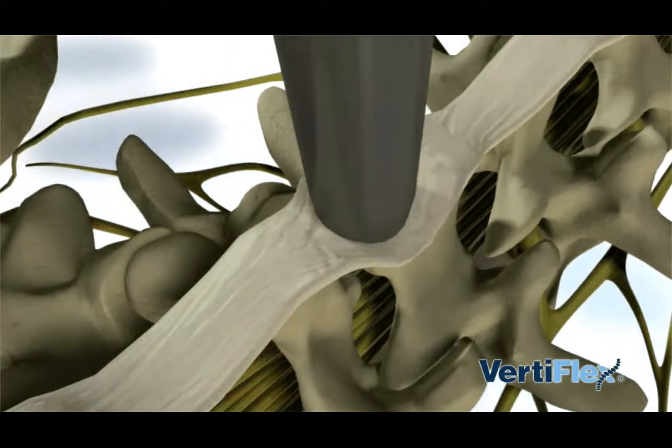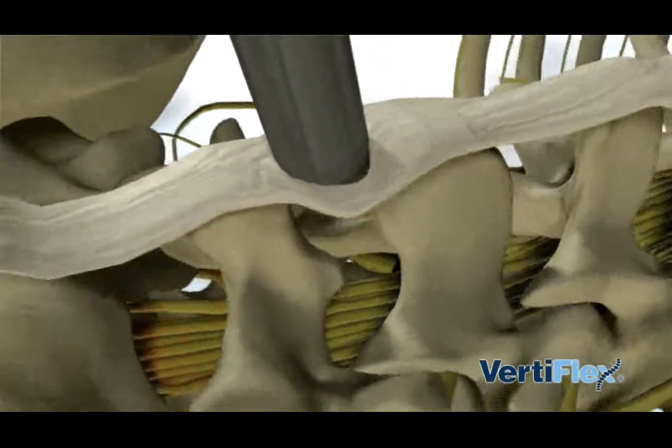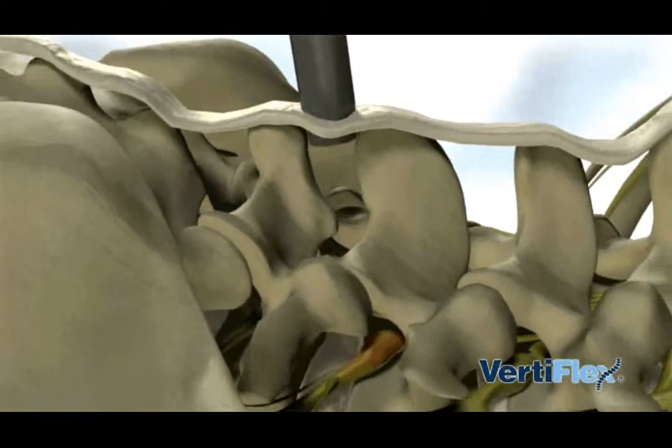Superion is implanted into the lumbar or lower spine through a tube that is approximately the diameter of a dime.